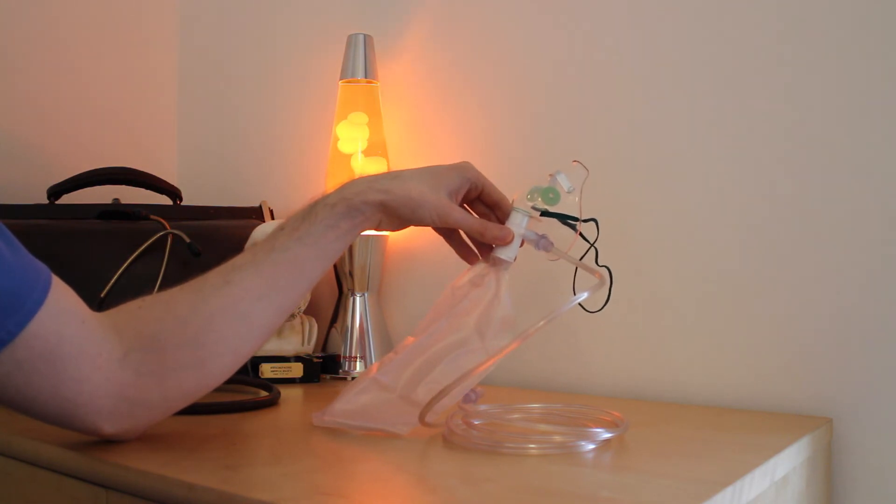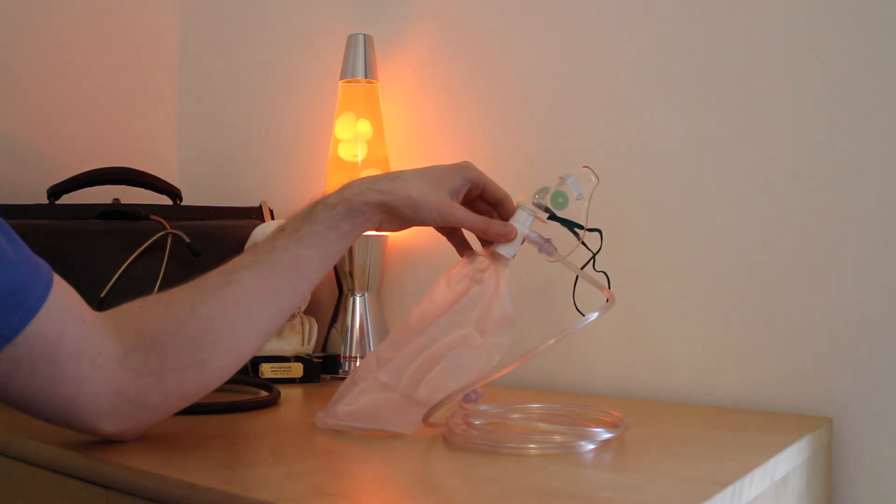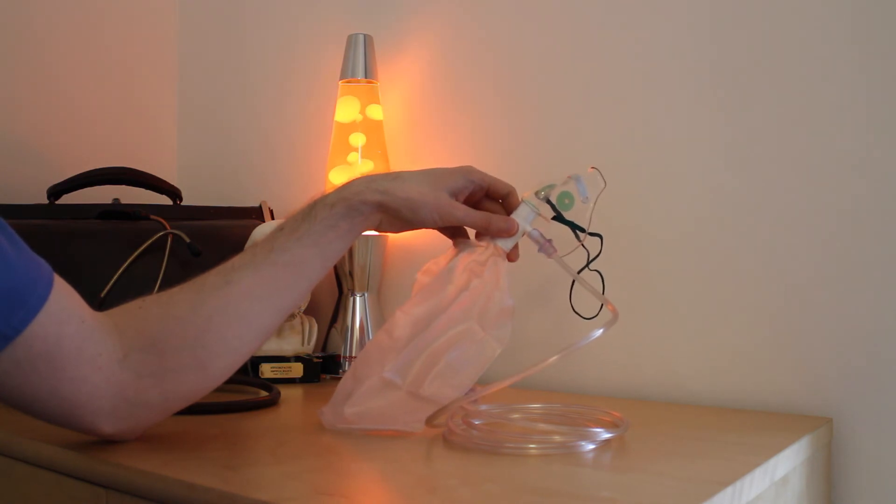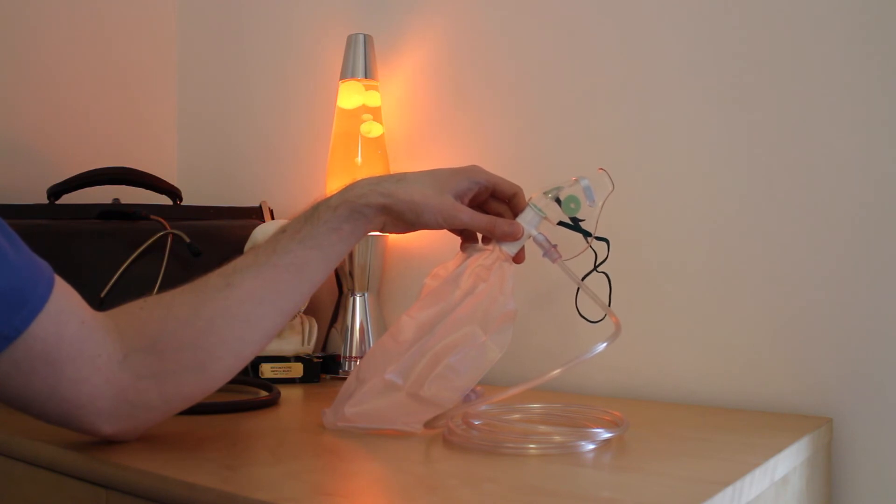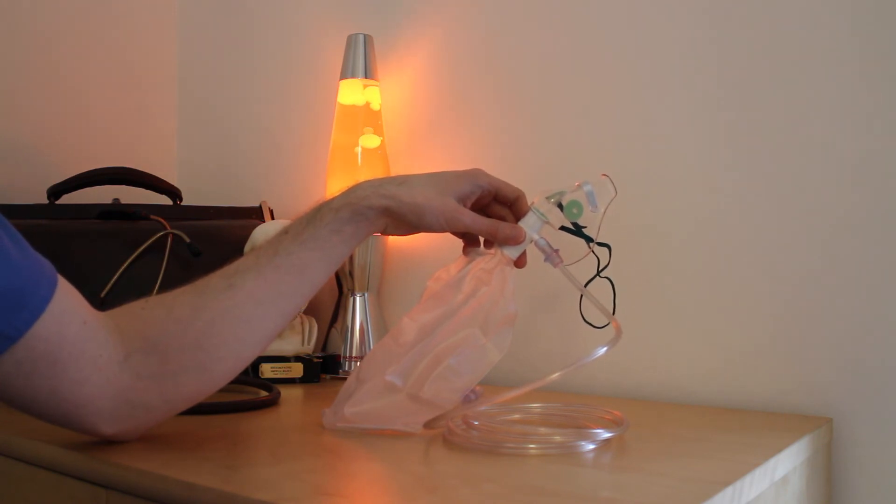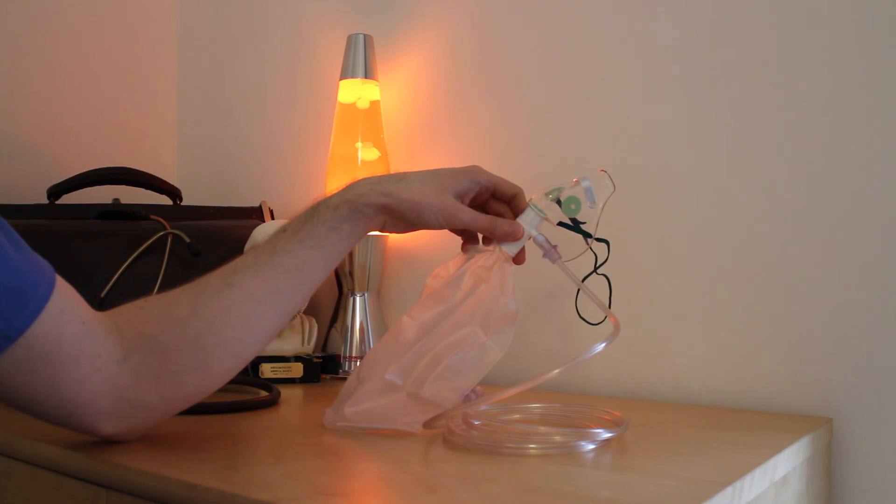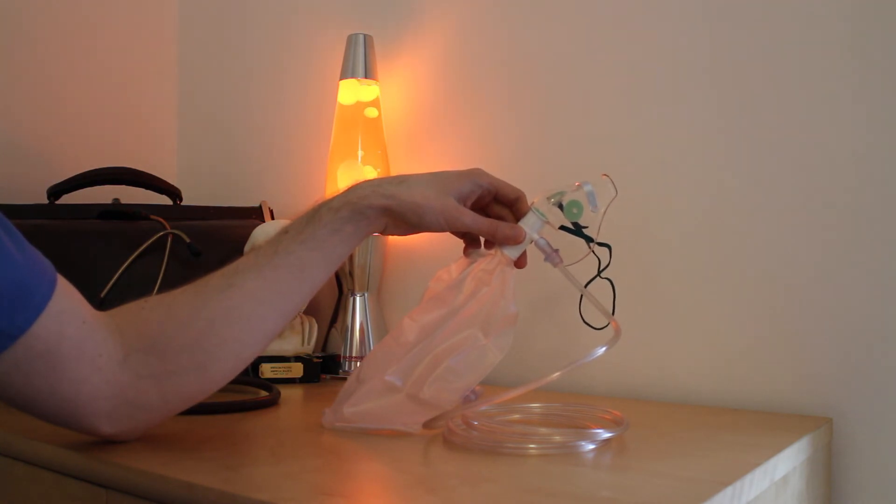There are certain groups of patients, such as those who are known to retain carbon dioxide, who shouldn't be oxygenated with this mask for long periods because they are at risk of losing their hypoxic drive to breathe and as a consequence may go into respiratory arrest. Typically, these are patients with severe chronic obstructive pulmonary disease.